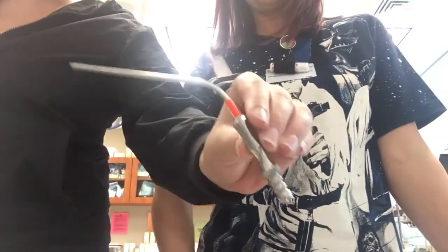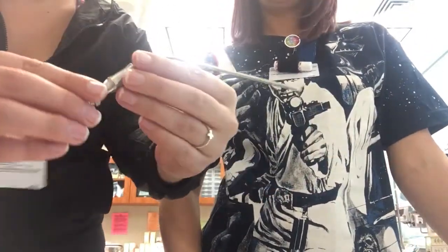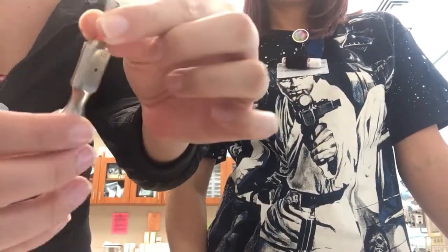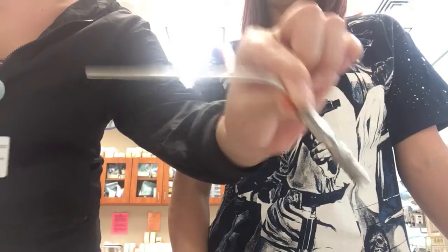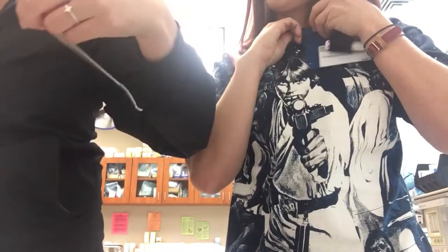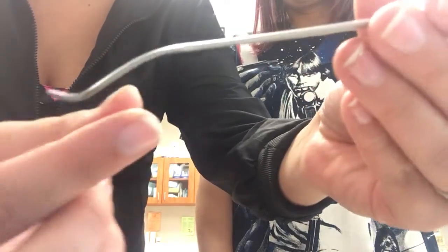This is a Fraser suction. It's like a rectangle — not an oval, it's a rectangle right there — and it has that hole there. It's just a Fraser suction. And then we have a Homan baby retractor. This one we're trying to remember because it looks like a little spoon and you can put a little P on it — it would be the home to a little P.